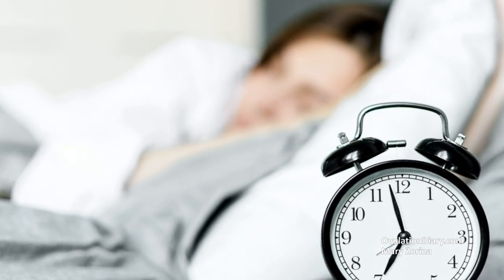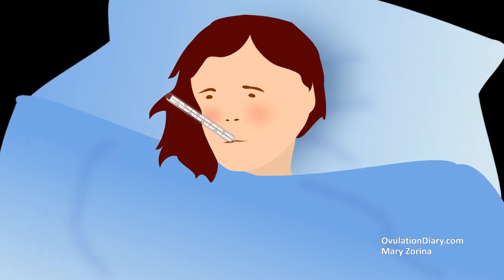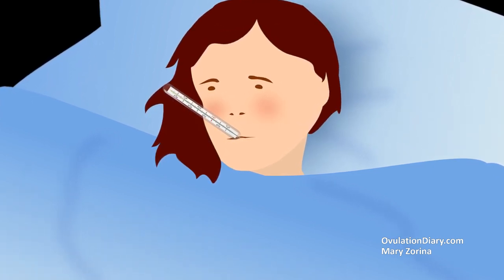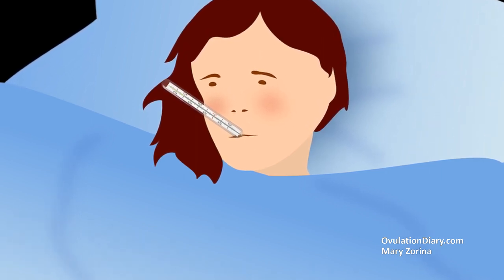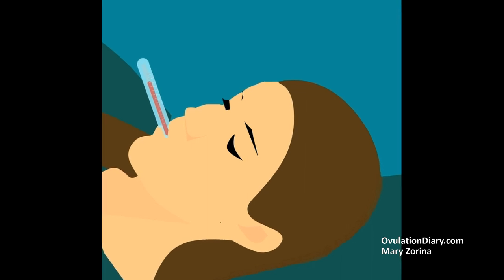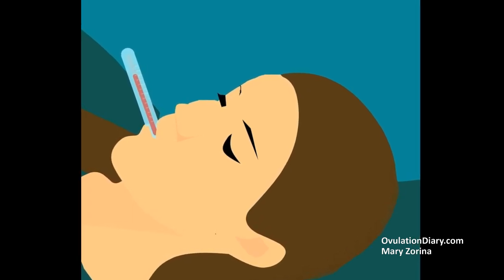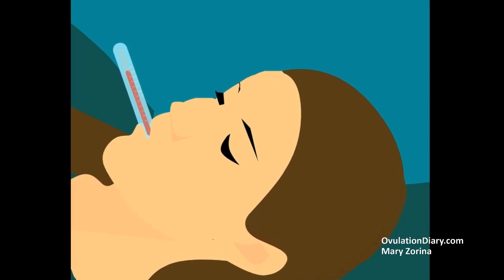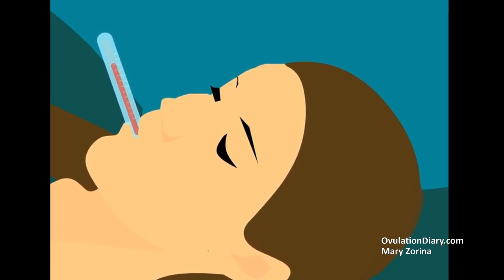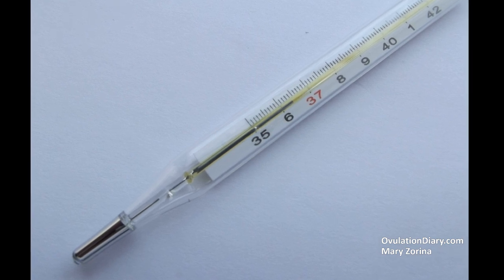When measuring BBT orally, you shouldn't make unnecessary gestures or talk after waking up. Quickly place the thermometer under the tongue and wait about eight minutes, or until the sound signal with an electronic thermometer. The thermometer should not cause pain, pressure, or discomfort, as this could stimulate excess blood flow and tissue heating, leading to an increased BBT result. Both electronic and glass mercury or non-mercury thermometers are equally suitable for the oral method.